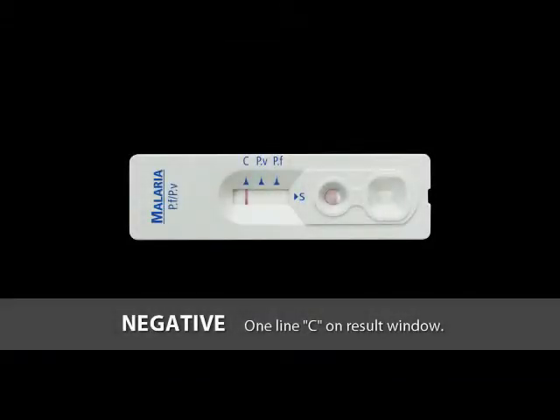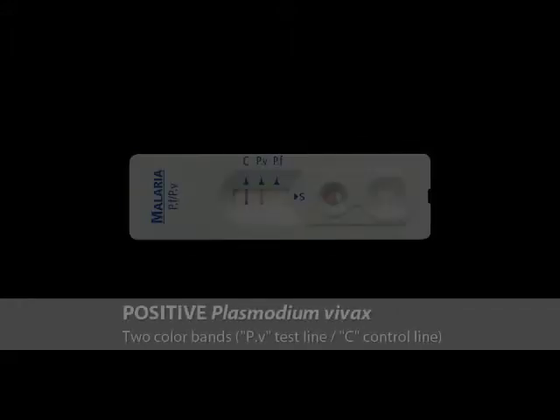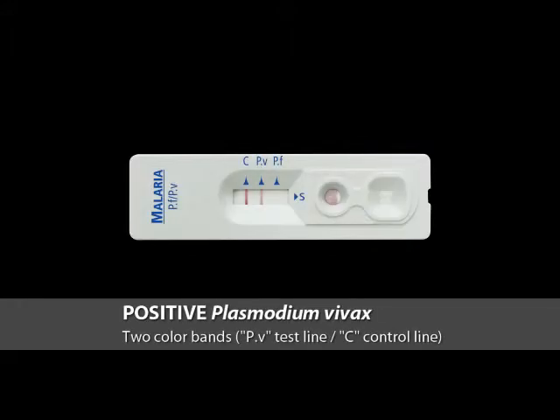Only one line at C on the result window means negative. 2 colour bands on the PF and C lines mean Plasmodium falciparum positive. 2 colour bands on the PV and C lines mean Plasmodium vivax positive.